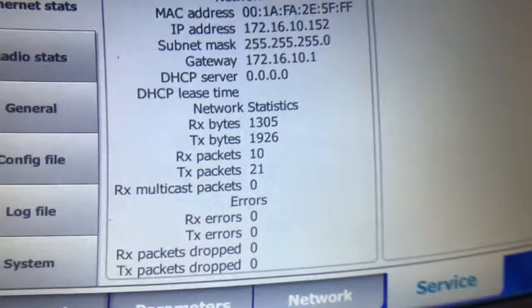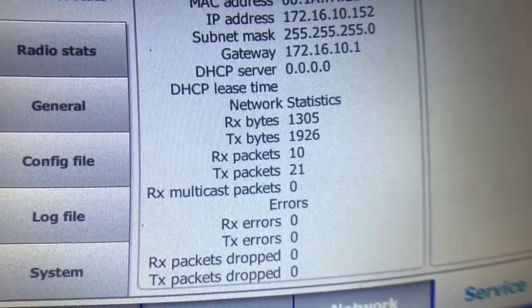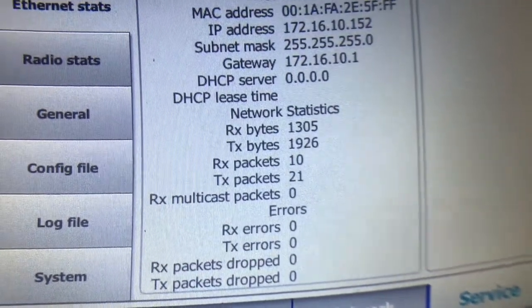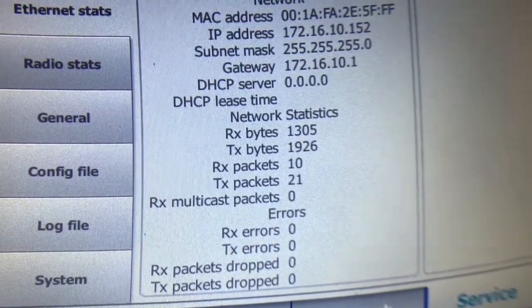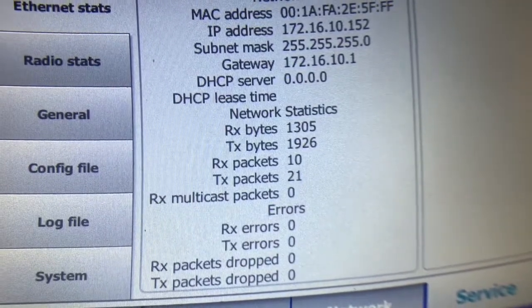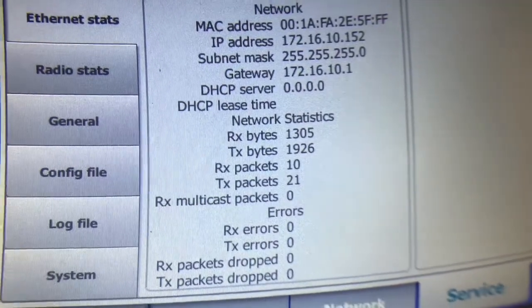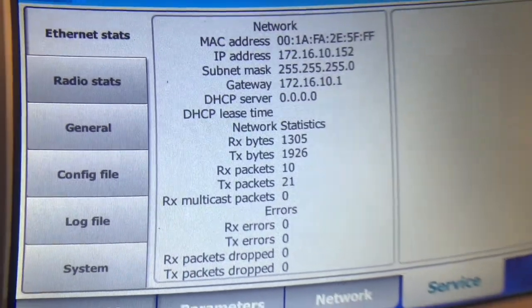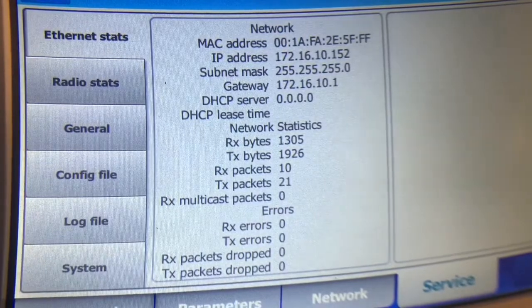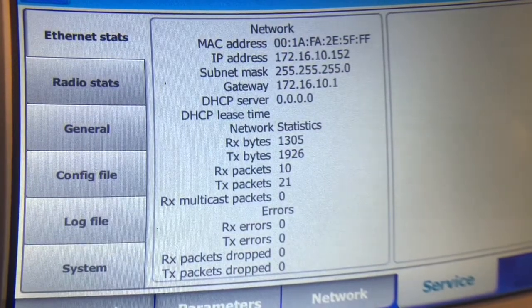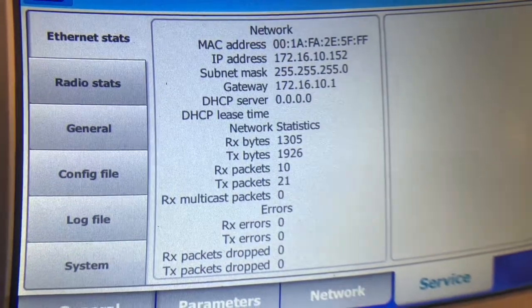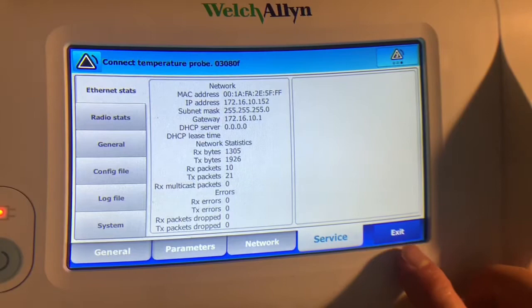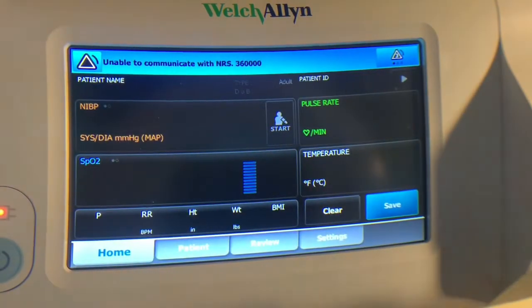And you can see here also it's actually passed some network traffic to and from a device on the network, probably the router. It may also be reaching out to the internet, maybe look for an update or something like that. But you can verify that it saved it.